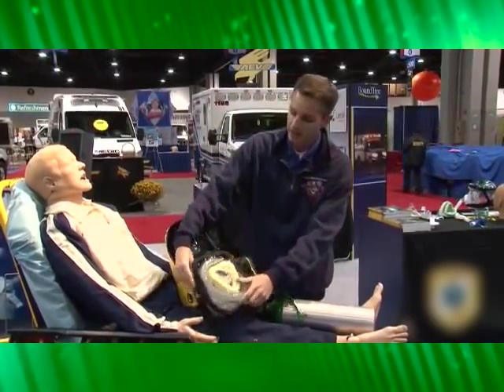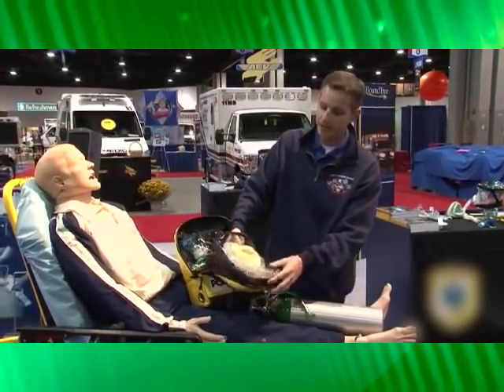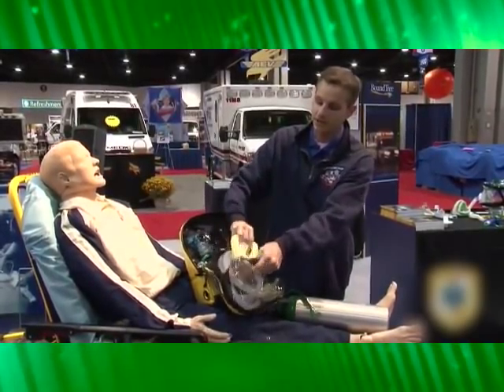Part of this kit — if you circle the tube into the top of the bag around the mask, you make sure you keep the foam on the mask from being crushed, and it gives you a nice soft seal for the patient.